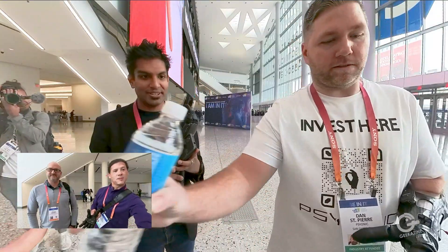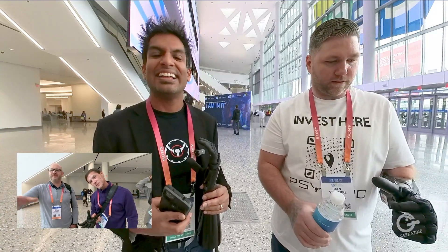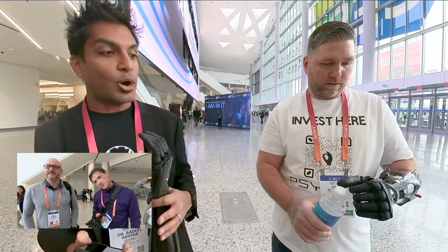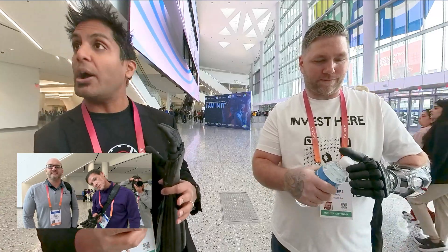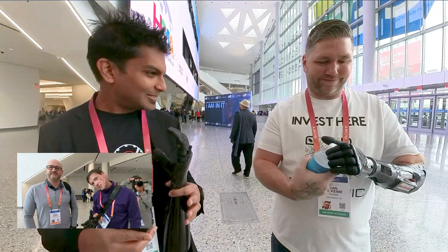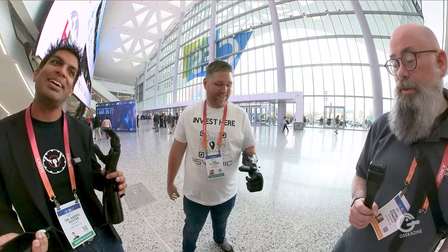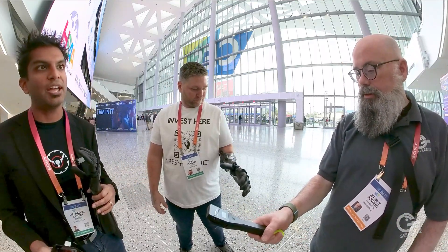You want to try it? Try it in a key grip. How do you change your profile? When the hand is open, he can switch grips that way. It's just spinning the cap now — that's something to work on for the future. He can hold the bottle with that hand and open it with his right hand.